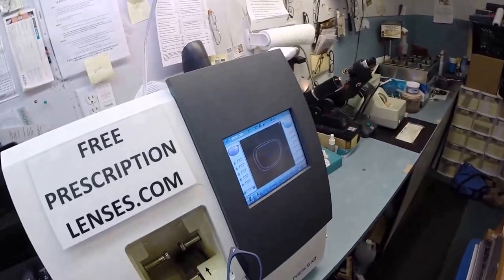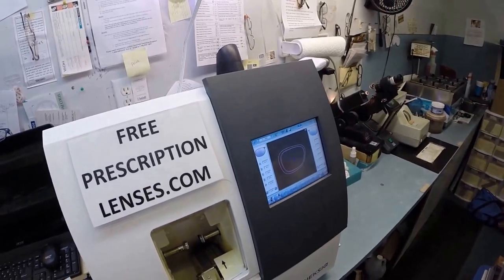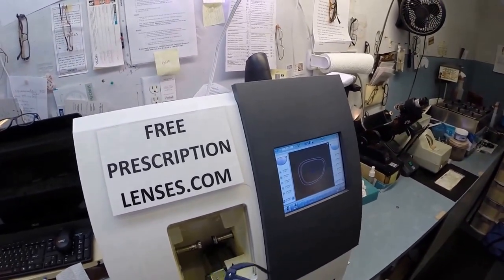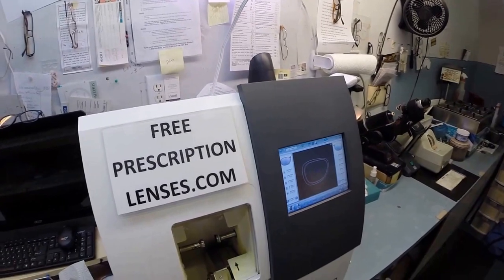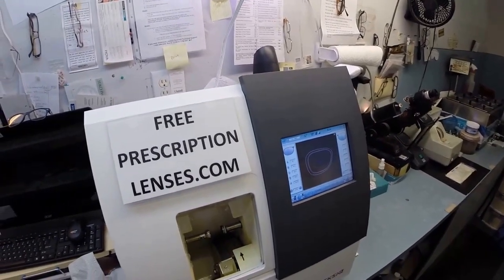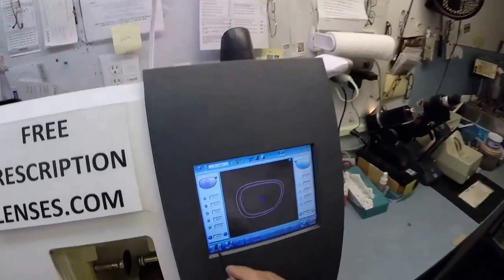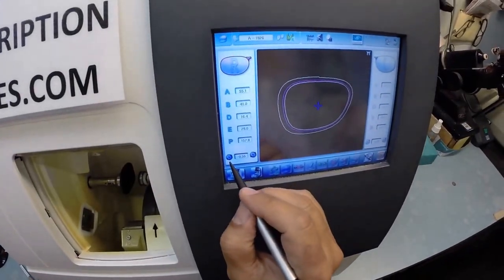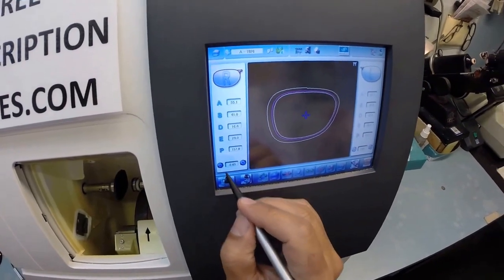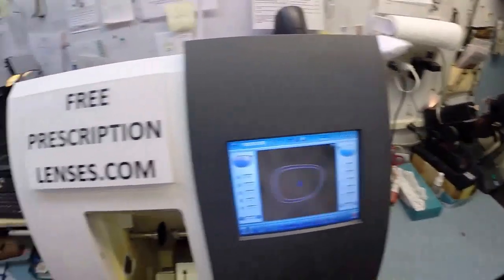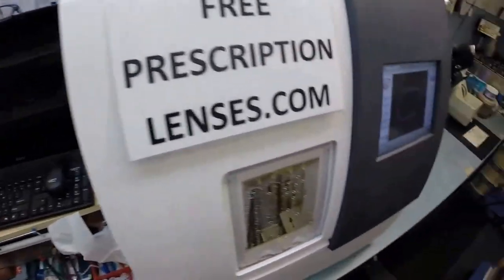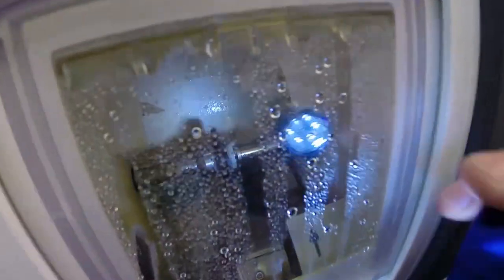So I'm going to tuck the lens in at the outside corner again, using my thumbs, press down at the nose. And it snaps in there, but I don't like that. Let me pop that back out. It's still a little firm. I'm going to take it down about 0.15 more millimeters. Again, in half steps. 0.55, 0.60, 0.65. Two-thirds of a millimeter. Hit the retouch button. I apologize that this is taking an extra minute or two. But again, you want a perfectionist like me cutting your lenses.